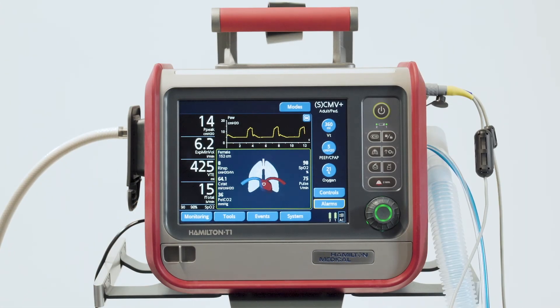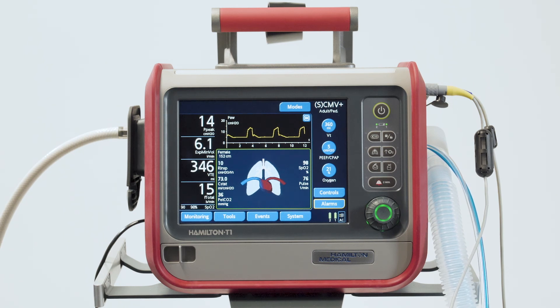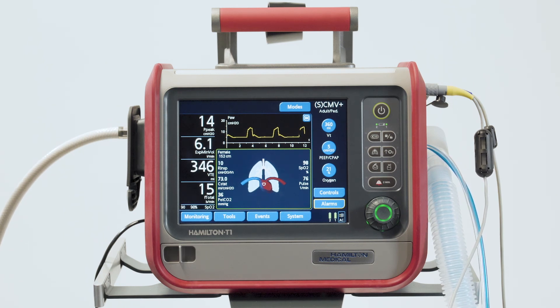Now you know which monitored patient parameters are available on your ventilator, and how to access them.